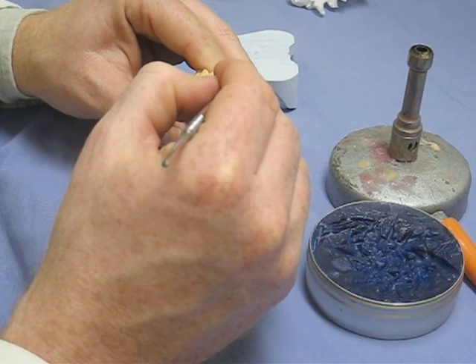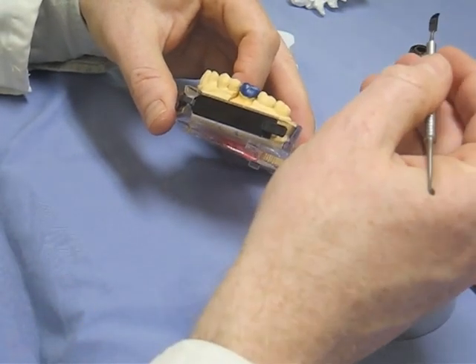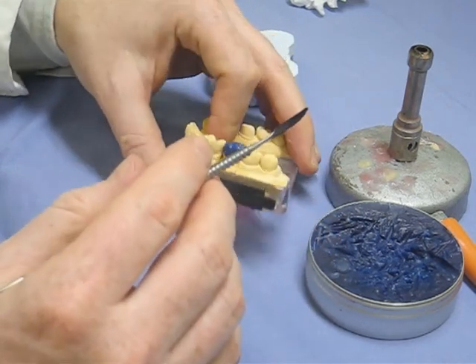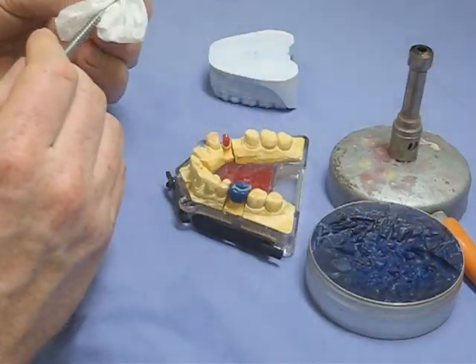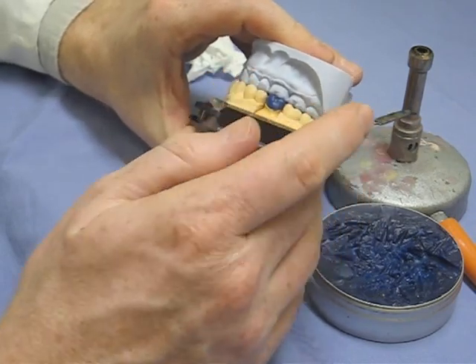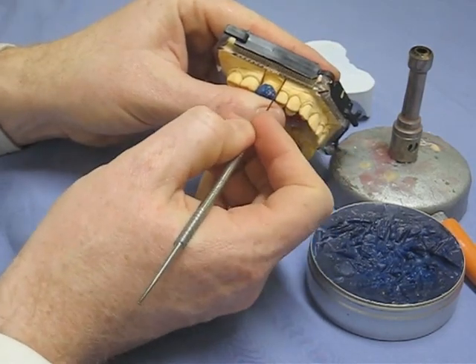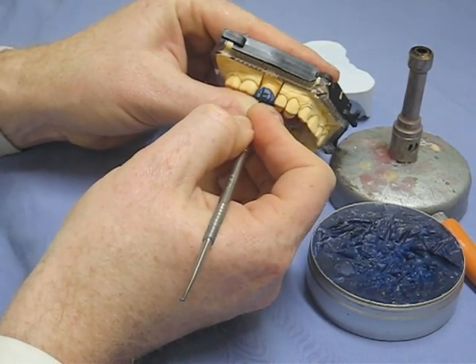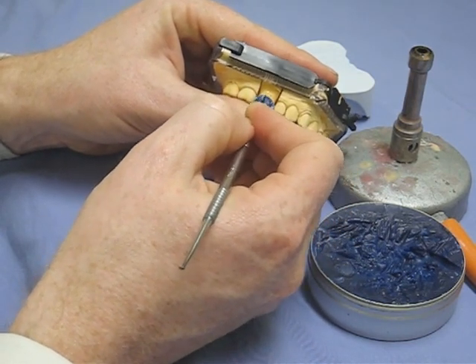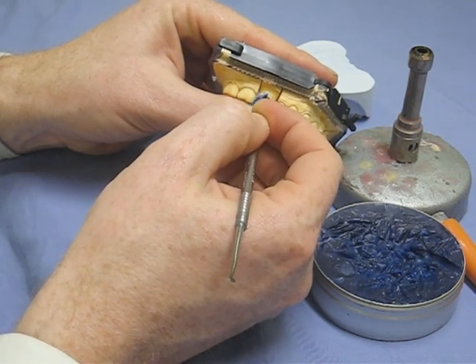You're aiming to make this crown fit in with the adjacent teeth — you want it to look like the adjacent teeth and the tooth on the opposite quadrant. If there were crowns adjacent to this tooth already, you wouldn't make it look like a textbook natural tooth; you'd make it look like the adjacent crowns so it fits in well. Many dental labs produce over-contoured crowns and scratch in occlusal detail that just holds food particles. When specifying your crown, you can specify the type of occlusion, and it's quite trendy at the moment to have a very minimal occlusal surface — almost polished flats with minor cusp features — to make it easy to clean.